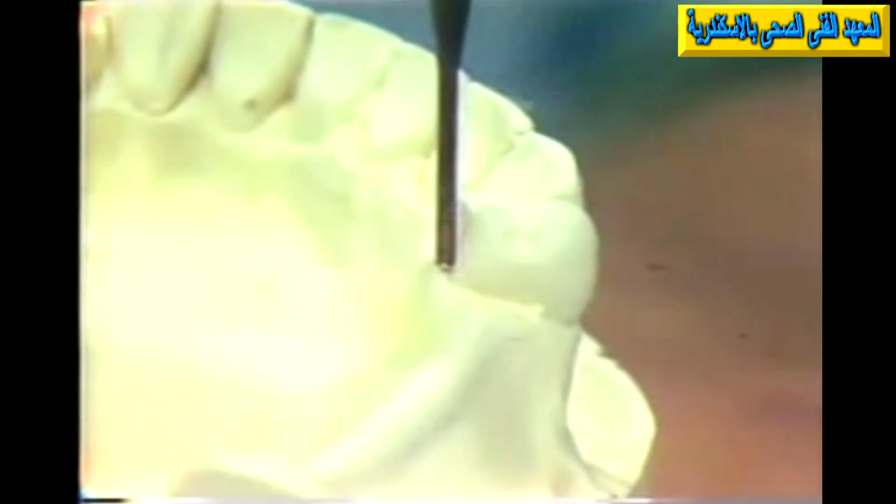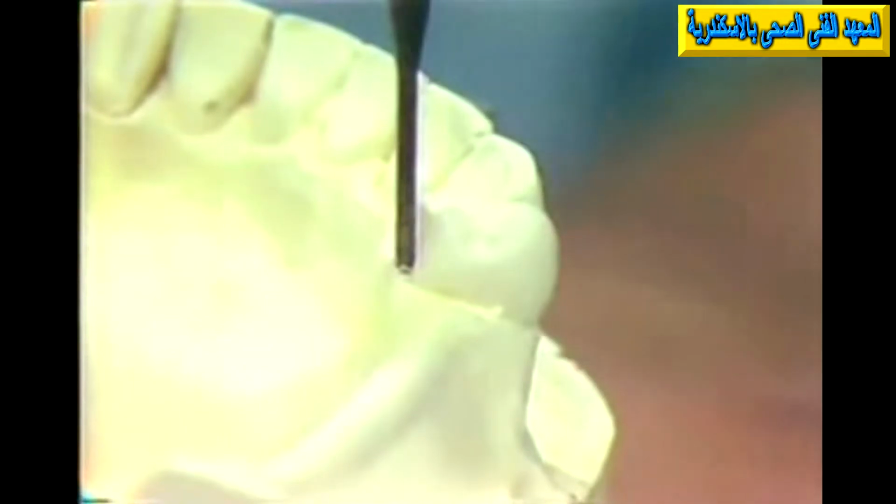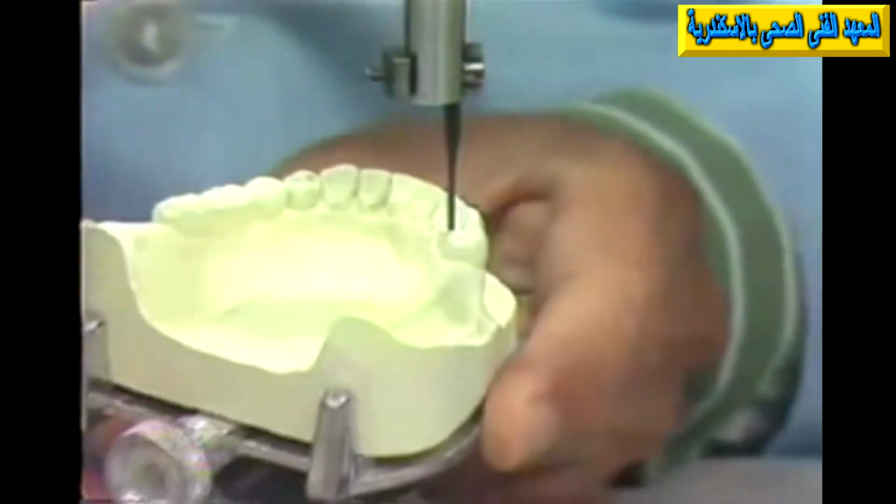Now, in this particular case, if we were interested in this undercut for purposes of retention, we would have to plan our clasp in a certain manner to utilize this much retention. At the same time, if we were checking the opposite side of this tooth and we were interested in some kind of a flat guiding plane, notice that the lingual surface slopes away. So in this particular circumstance, we would have a little problem gaining a guiding plane or a flat reciprocal surface here. Now we could, if we chose, tip the cast a little differently.